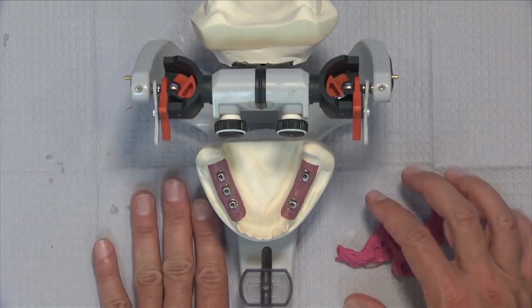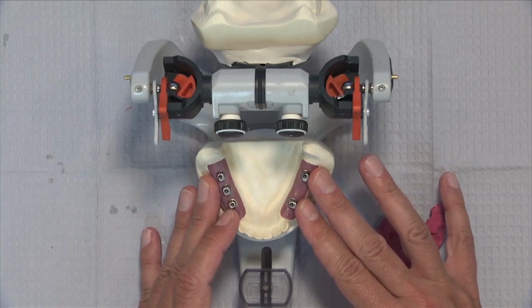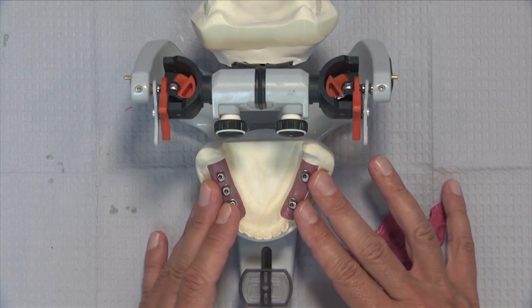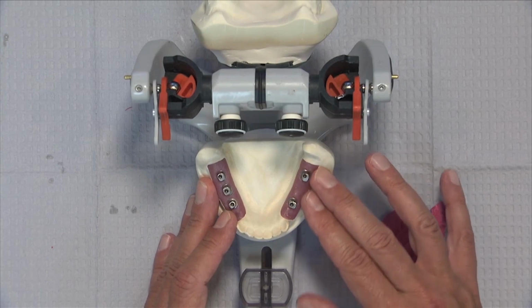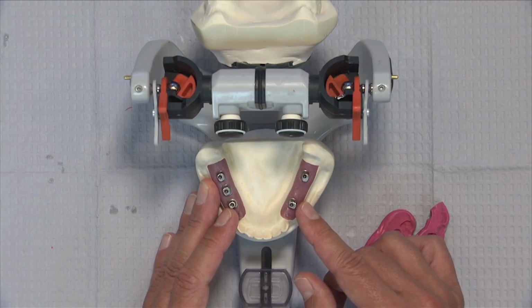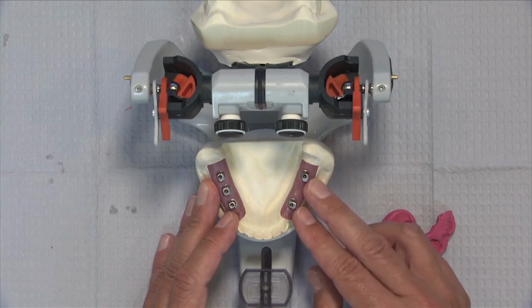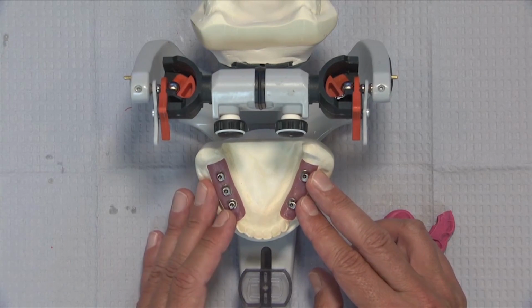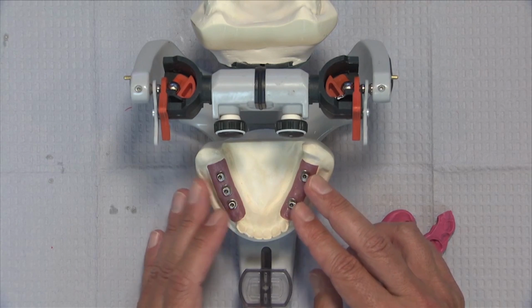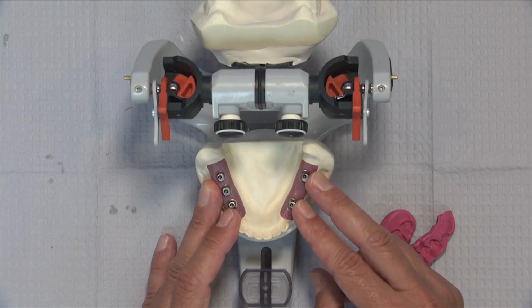In fact, we've recently started a new program here where we actually can do duplicate abutments. So when you remove the custom abutments and send it back to the laboratory now for a small charge, I think it's $59 a unit, we will actually send you duplicate abutments for these custom abutments, which will allow you to put those into place, and we'll also send a biotemps bridge along with it in case you want to do a fixed provisional solution at this point. So we can send you duplicate abutments, and then you'll have a biotemp bridge that you can cement on top of that.